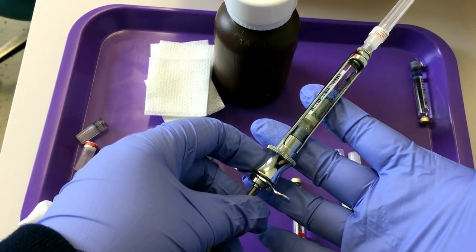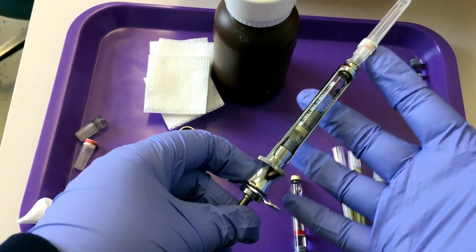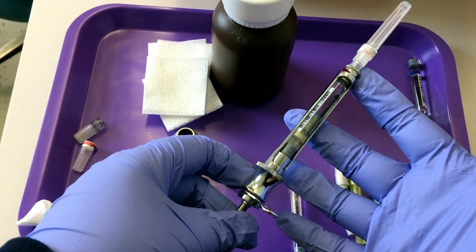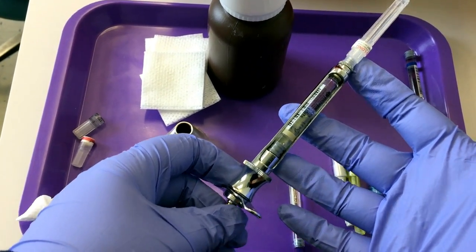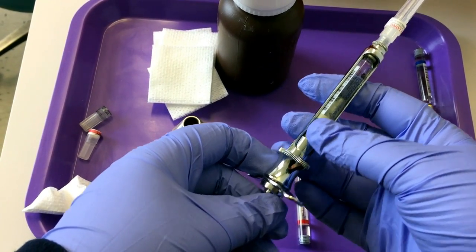To disassemble, remember needle is the first item on, it's the last item off. So what I do is remove the carpule.